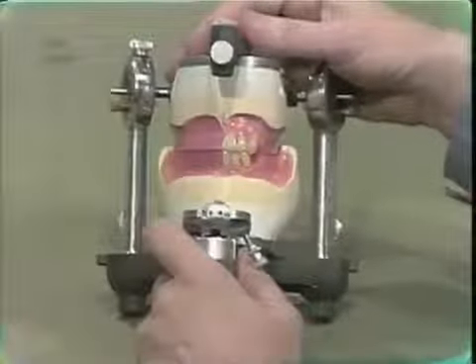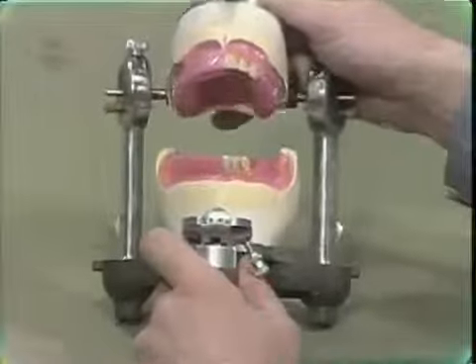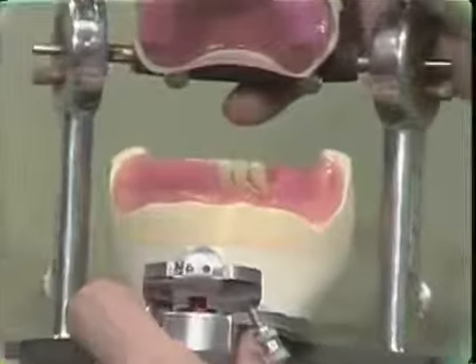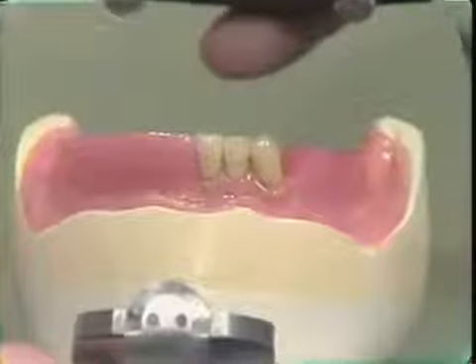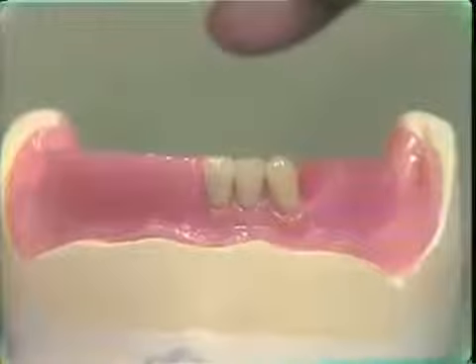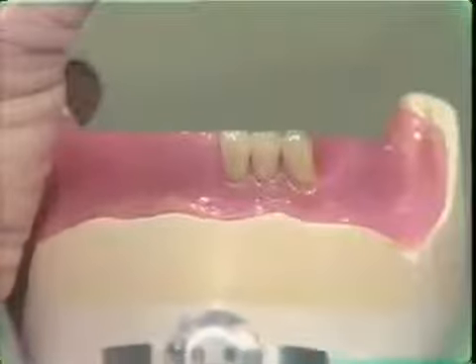The mandibular lateral incisor and cuspid are now set. Notice that the lateral incisor is positioned with the incisal edge even with the central incisor. The labial surface of the tooth maintains the continuity of the mandibular occlusal rim, and the long axis of the tooth is such that the neck is slightly to the distal.